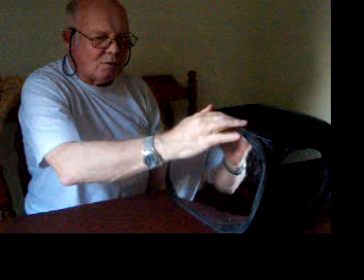When I do exercises on my right hand, at first when I first tried this I didn't notice very much, but after a few days I started to feel a feeling in the back of my wrist, which worked down into my hand and then into my fingers. Surprisingly, I actually discovered that when I was doing the exercises, I started to feel as if my left hand was doing the exercises, although I'm quite aware that my left hand is still closed up.